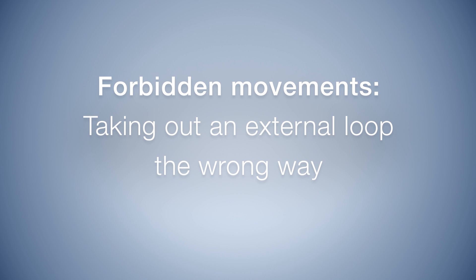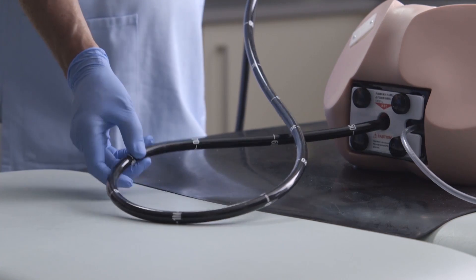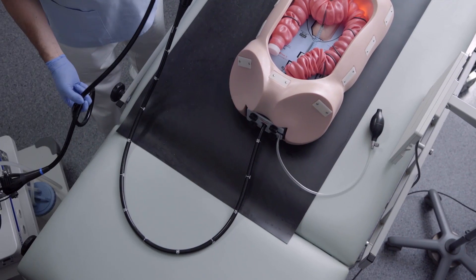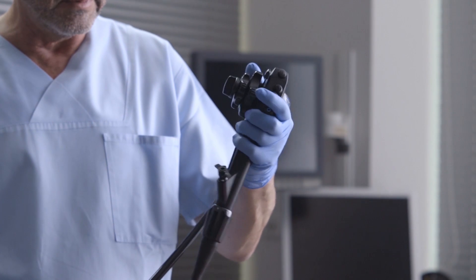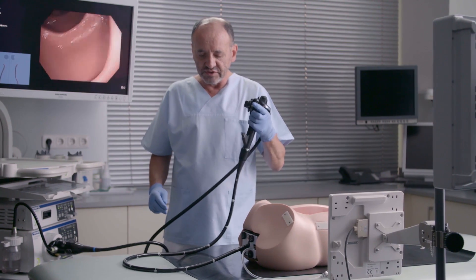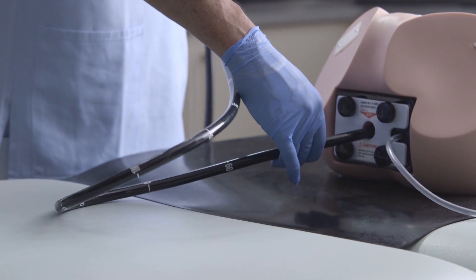Improper way of reducing a loop. By doing that — sending it — you shorten the umbilicus and reduce the mobility of the instrument. Movements at this level become more difficult, so you reduce your movements.